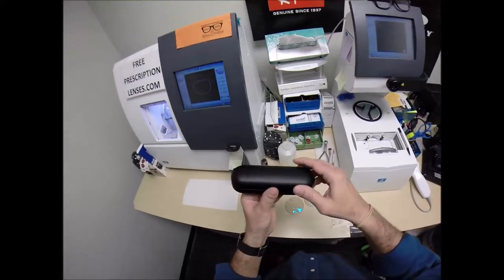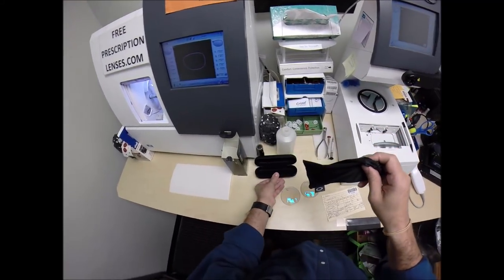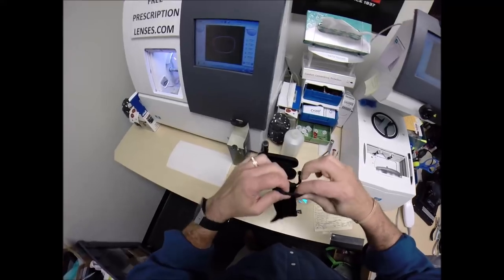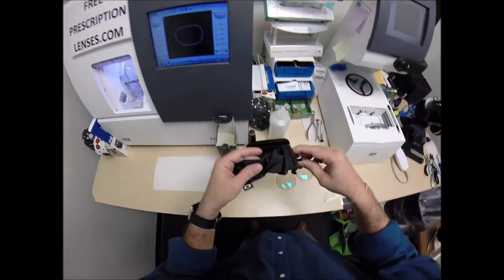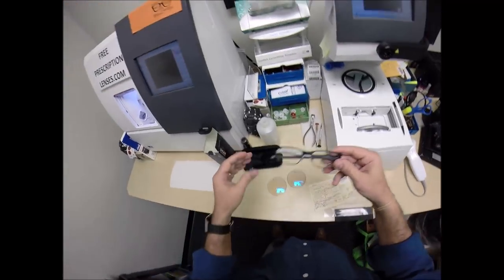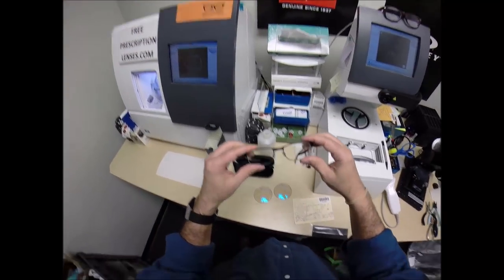Now I do offer this frame, but he already had it. He had some lenses, some invisible bifocals he didn't care for, and wanted to upgrade to the Transitions Extra Active with the Blue Flash Mirror.